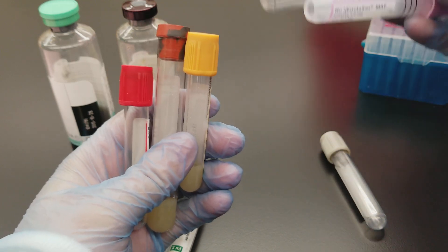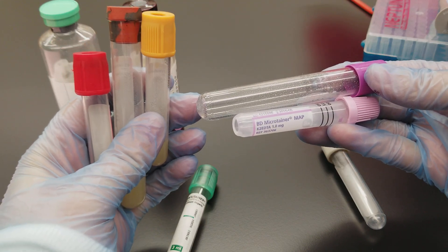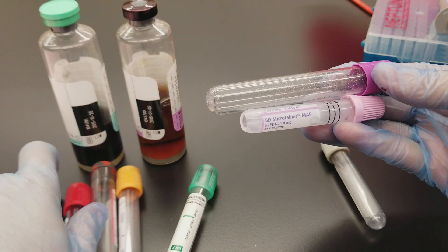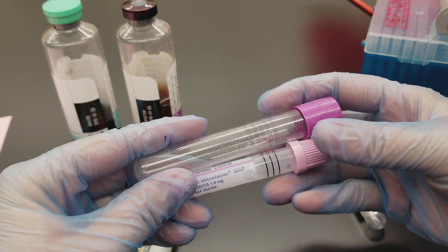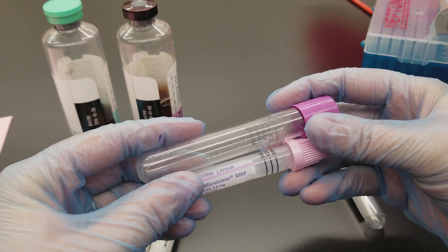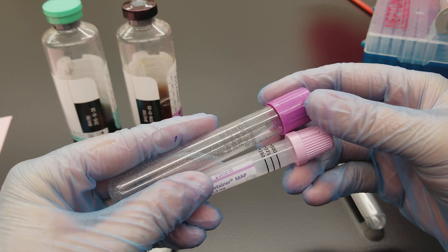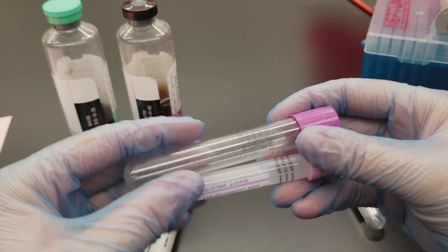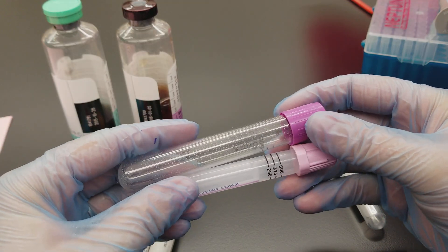You might end up putting the specimen on twice and it never reads the potassium or the calcium — that is a big indication that the purple top was drawn in front of the chemistries. That's a big problem. The order of draw ends up affecting your chemistries, and please don't ever report out those criticals, because you're going to cause the patient to be treated improperly, which could really affect their health care and affect you as well in regard to your experience and the possibility of losing your job.